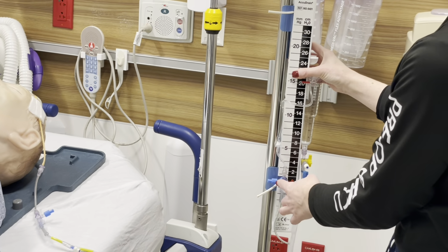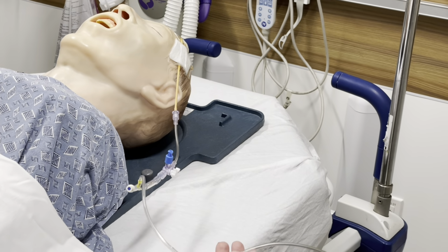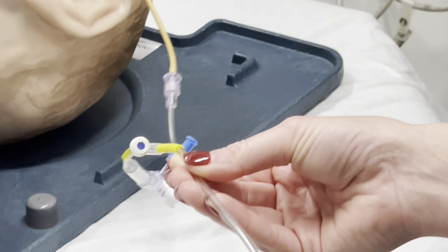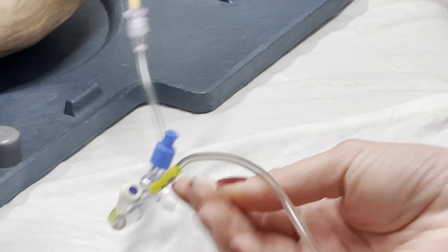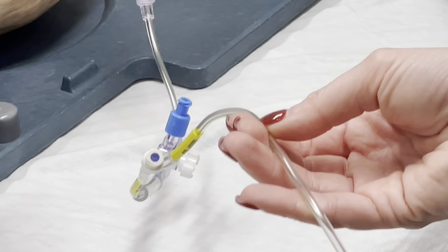When they come out of the OR, they will have this whole thing set up this way. They will not have the transducer, which we will do in just a moment. I'll attach here. What is important is that all of this here is going to be flushed by neurosurgery or the neurosurgery PA. So it should have clear fluid in it. It should be sterile, normal saline, and maybe a little blood tinge depending on what their injury is. But if you notice that it has no liquid in it at all, it's all air and nobody flushed it, that's something that you're going to have to end up calling neurosurgery for. That's not something that we're going to be doing.